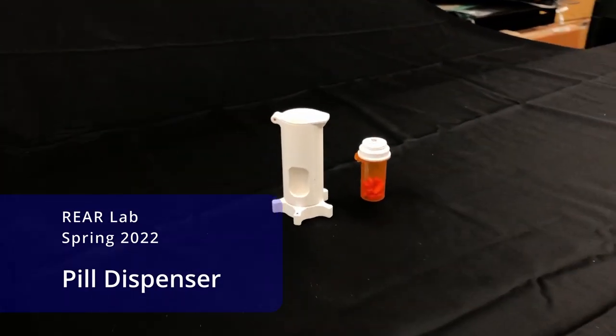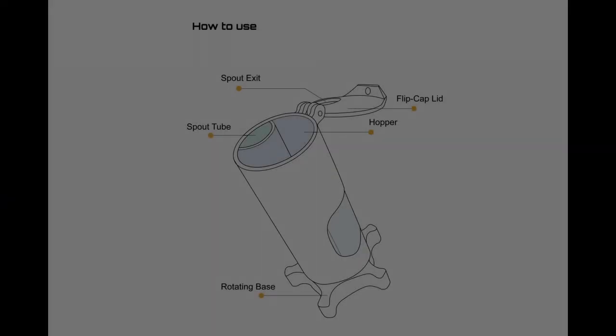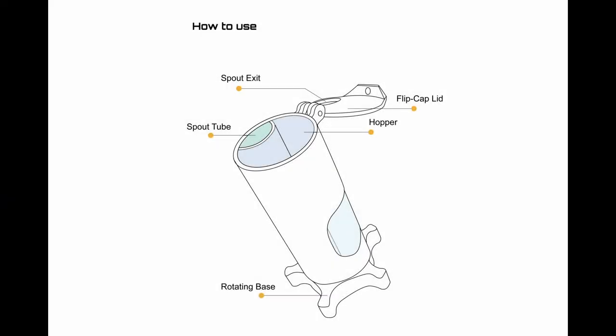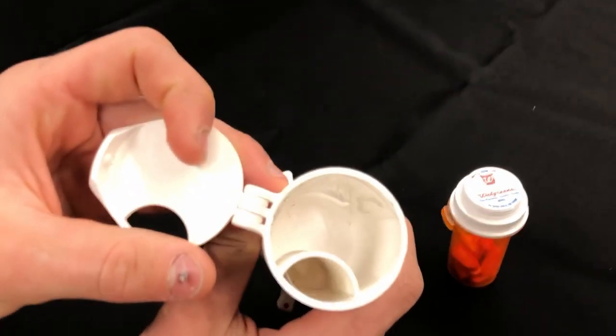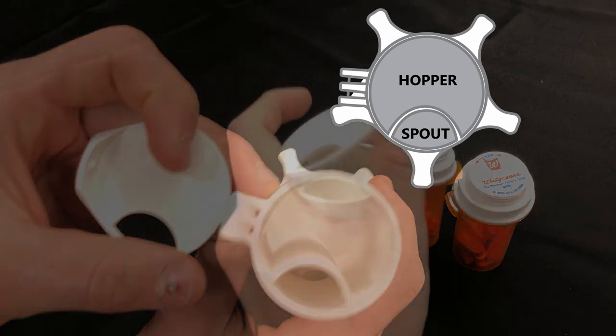This video will show usage of the pill dispenser. The pill dispenser is a flip top cap that can be opened, showing the two sections to the main body of the pill dispenser.